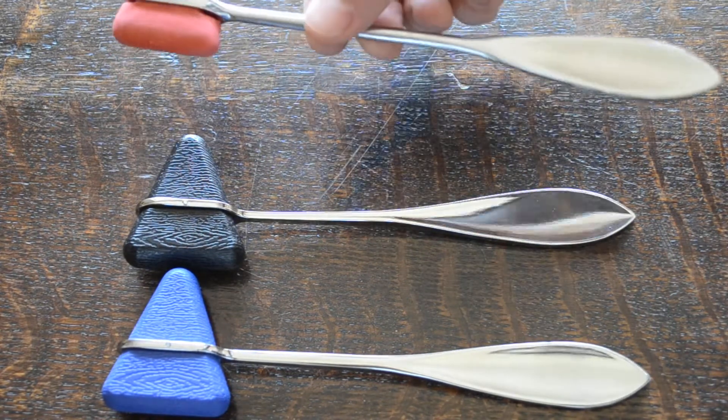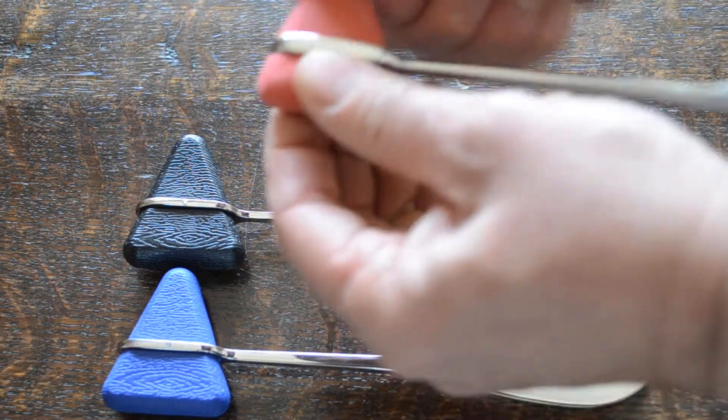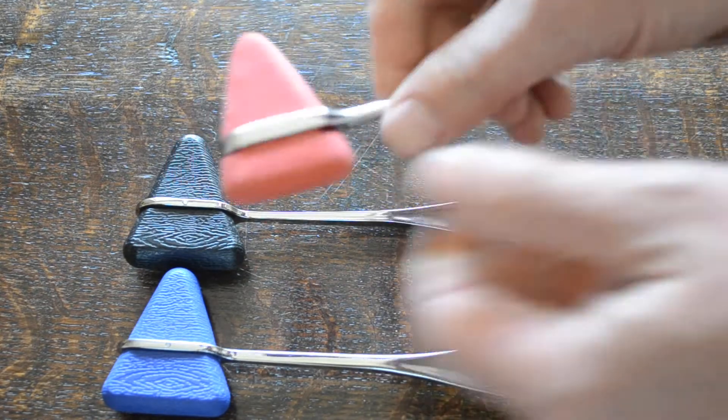On the top model here we have a classic Taylor's with a removable rubber head. Now this is a soft rubber very similar in texture to a classic rubber eraser.